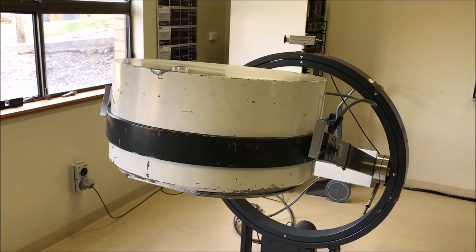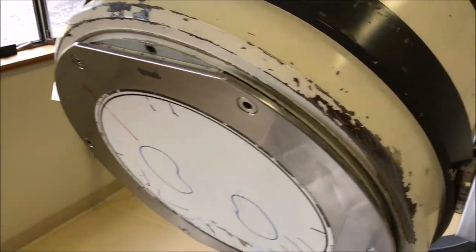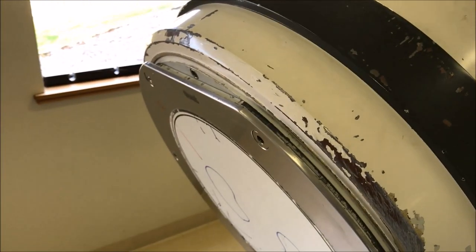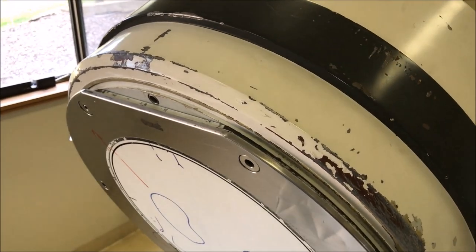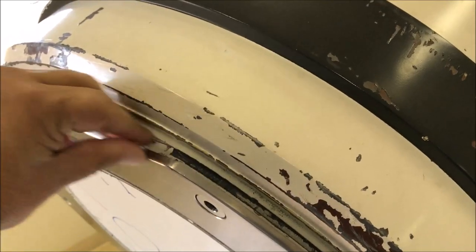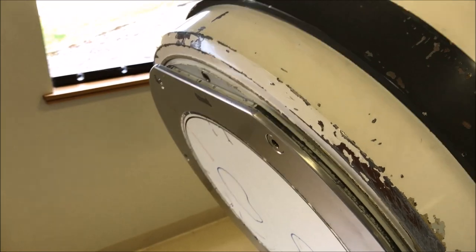Let's go back to our old camera — the old GE, because it's easy to pull apart. You can see here on the front is the collimator. Typically they're made of lead or tungsten and they're essentially a bunch of holes that ensure photons come in the right direction. It slots on the front and is quite heavy — 60 to 80 kilograms is not uncommon — and its job is to absorb photons that come in the wrong direction.